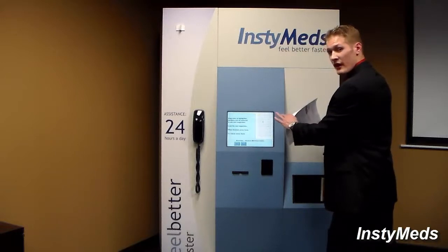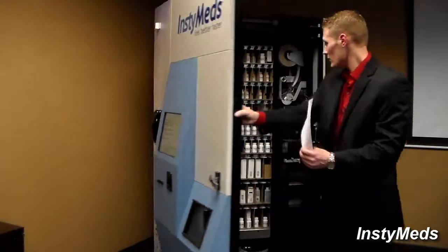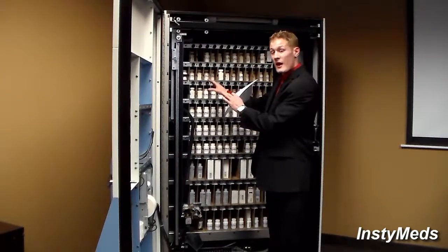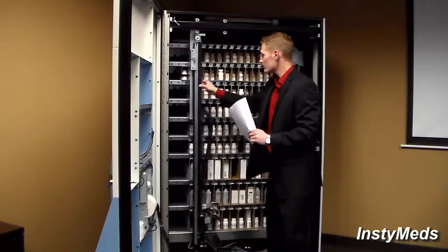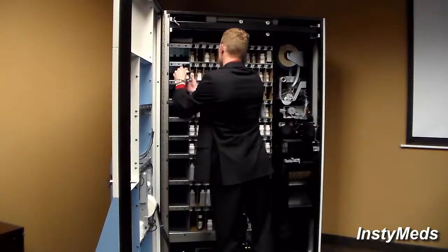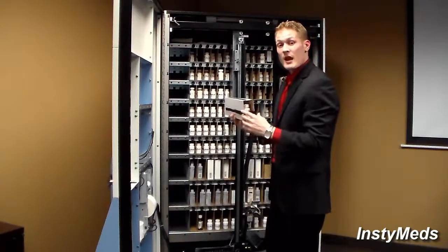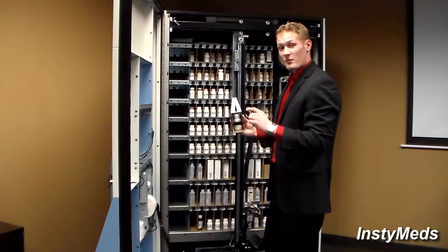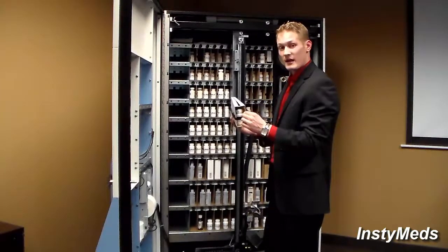So now that we know which location needs to be removed and which to add, I'm going to open back up the door. And I'm actually going to retrieve a magazine that I have on the side going off my restock report. Every magazine has a black Velcro strap, and this is to ensure that the medication inside stays together. In addition, the pharmacy and the individuals that will be doing the packaging process are always going to label every medication.